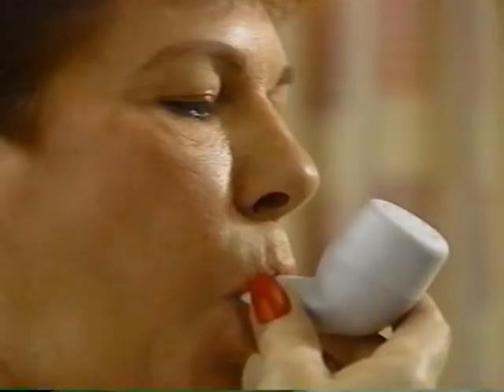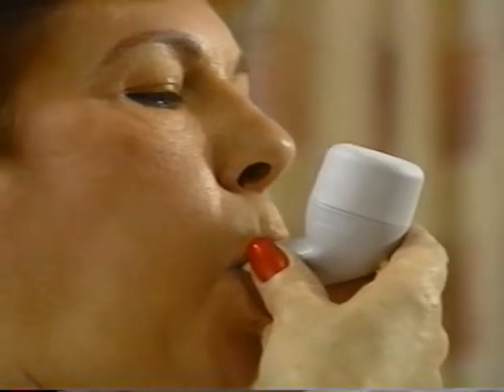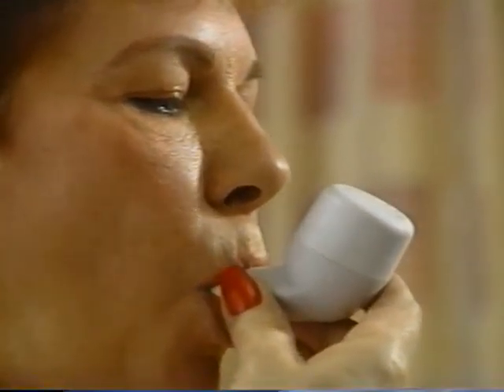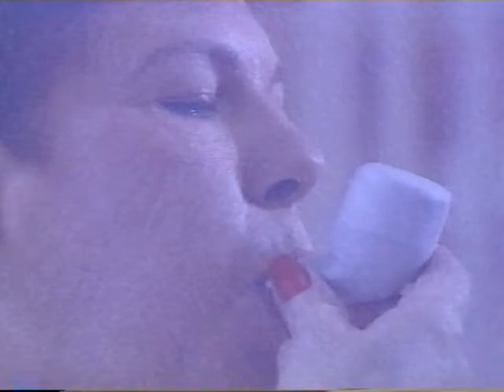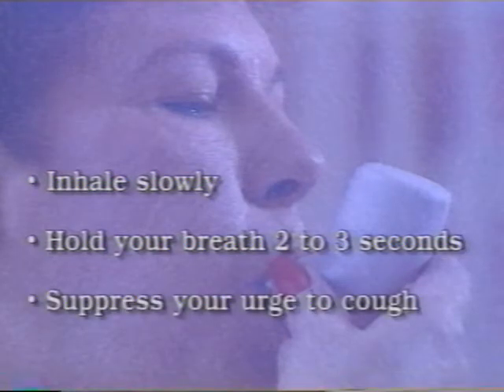Repeat the breathing technique for 5 to 10 breaths to loosen and mobilize as much mucus as possible from your airways. Each breath through the flutter moves the mucus further up your airways. Remember, during these loosening mobilization breaths, it is important to inhale slowly, hold your breath 2 to 3 seconds, and as you breathe out, suppress your urge to cough.